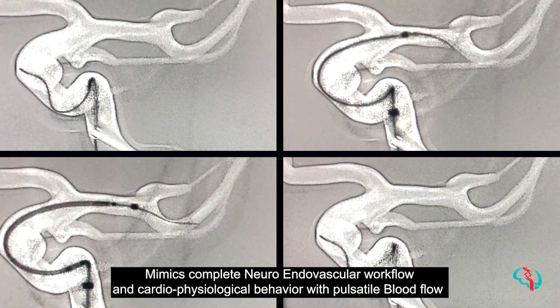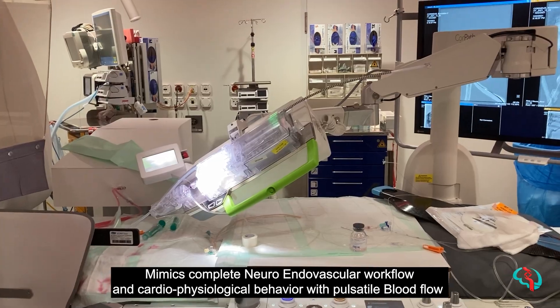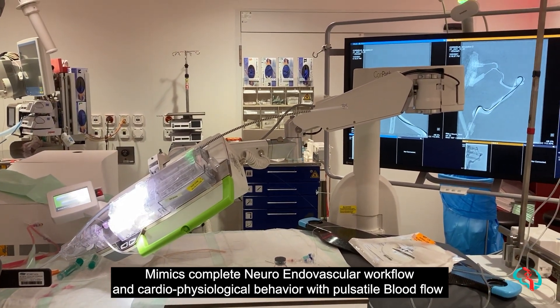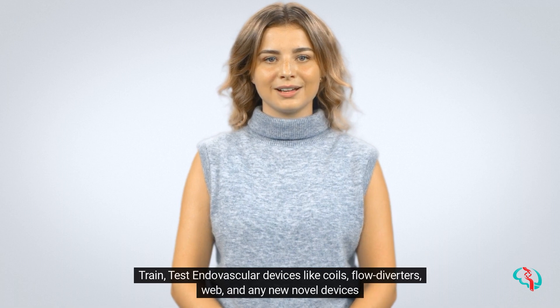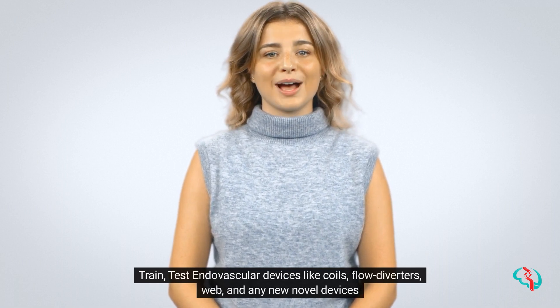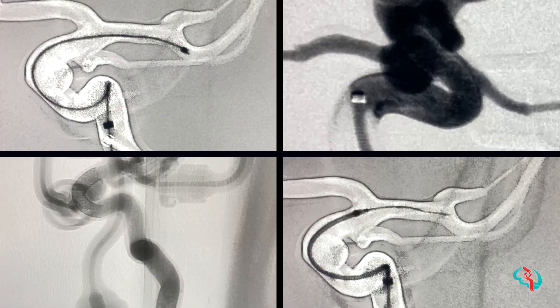It mimics the complete neuroendovascular workflow and cardiophysiological behavior with pulsatile blood flow. Train and test endovascular devices like coils, flow diverters, WEB, and any new novel devices.